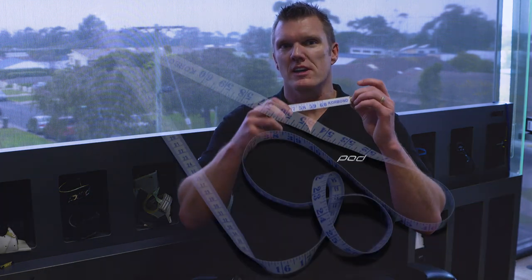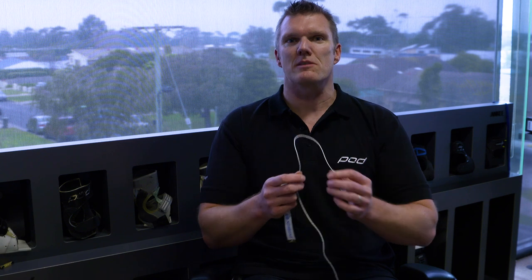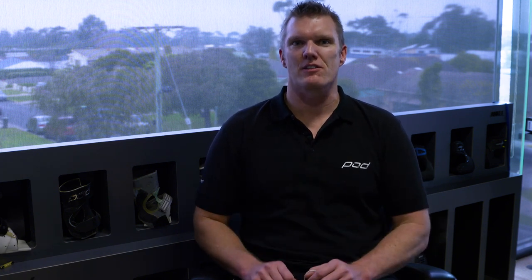If you're at home, we recommend that you use one of these soft tape measures, which we'll show you how to reference in a moment, or simply get a piece of string or wool. You can use that to measure the circumference of your knee, align it with a tape measure, and work out from the corresponding centimeters or inches what size frame you require to order online.